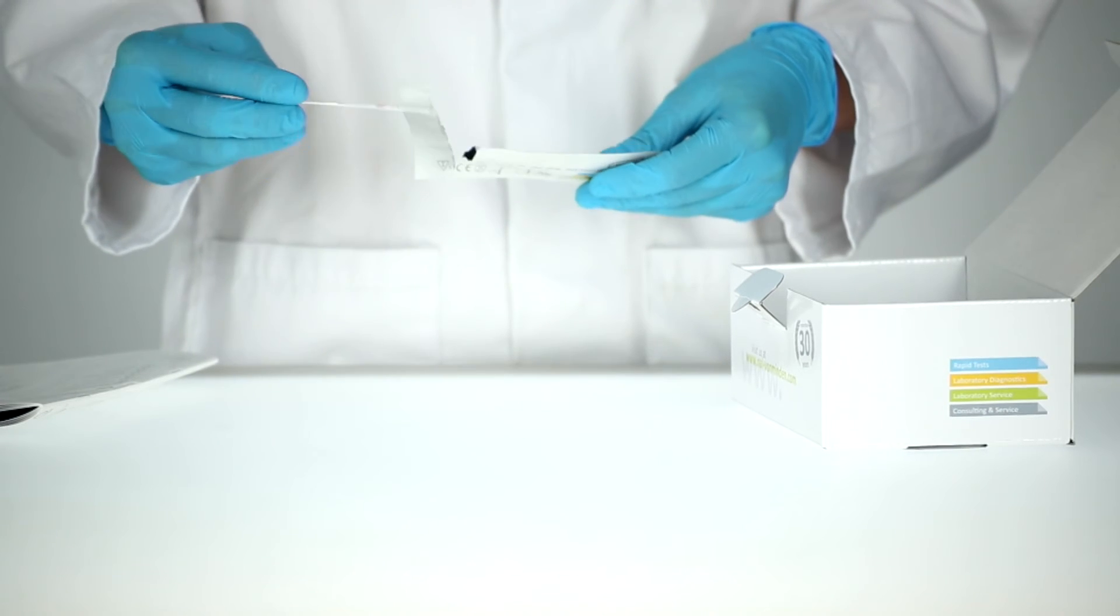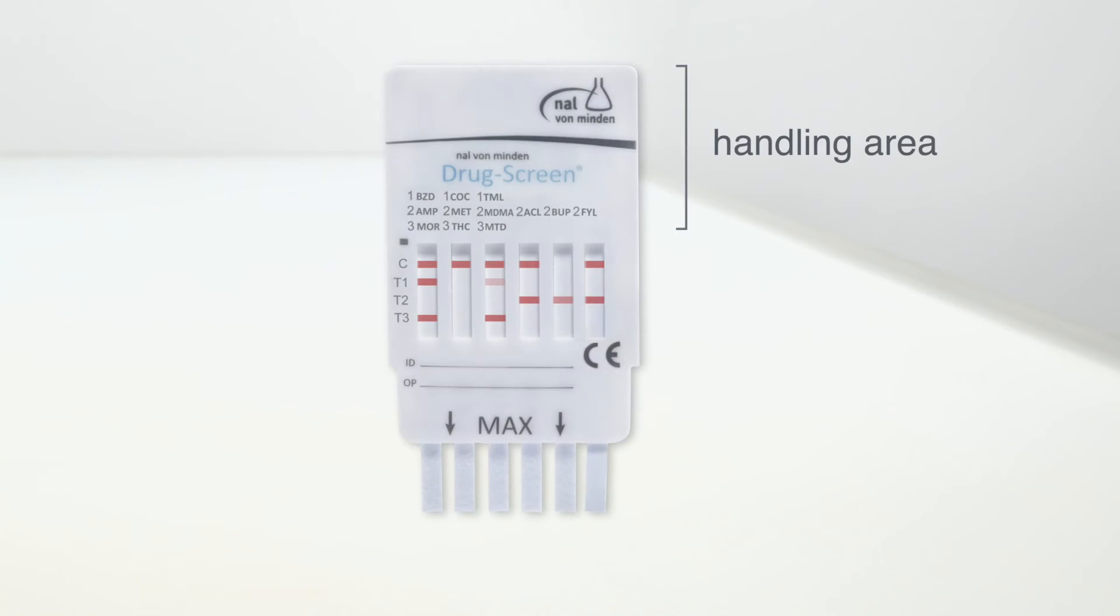Use the test immediately after removing it from its pouch and do not touch the sample pad or the reaction fields.